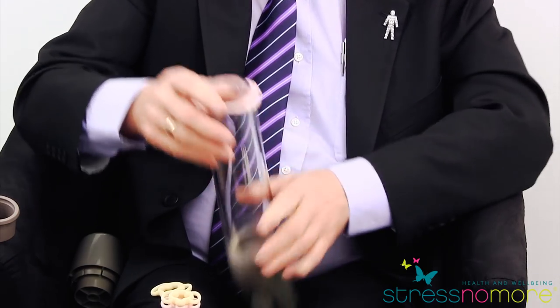Same principle — stretch it over, unlikely to need more lubricant, penis back in. It's a very short time to get the erection because you've been doing the exercise. Slide the ring off. Release the pump. For the sake of argument, say this is the right ring size — you put it on and find two minutes and it's still very firm. You then know this is the correct size for you, which means when you want to contemplate using the pump and the rings for intercourse, you can be prepared. And being prepared really is the secret with the vacuum device.